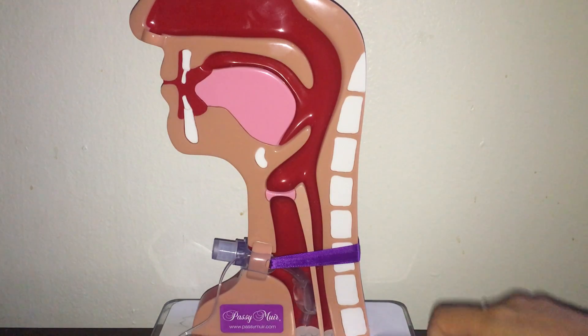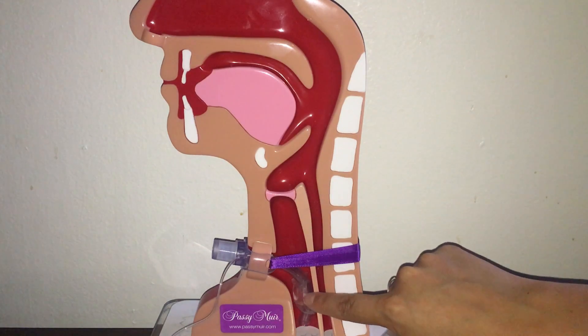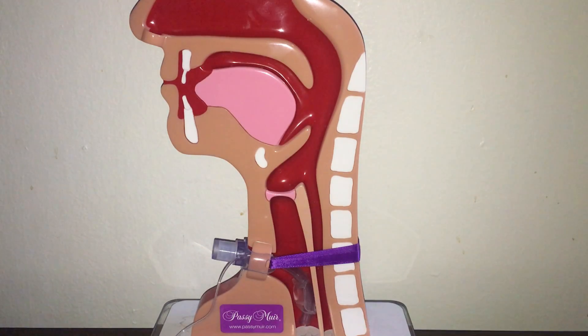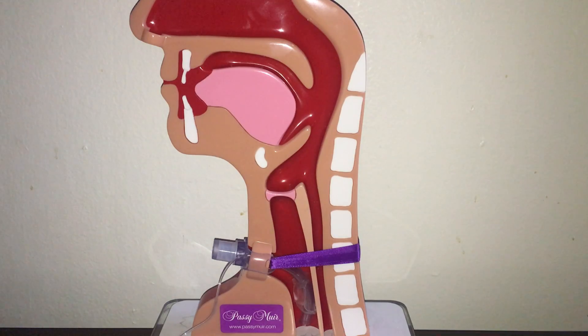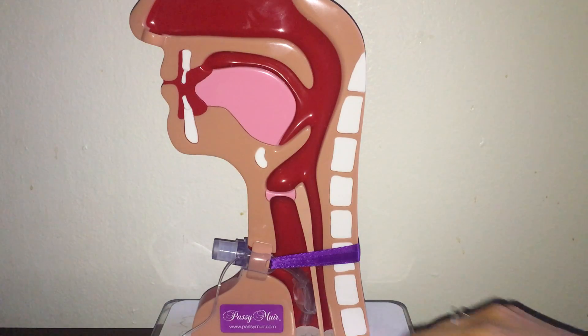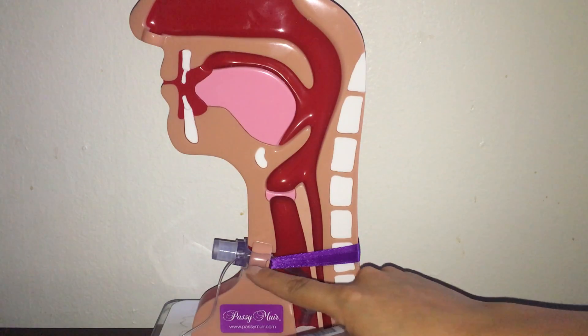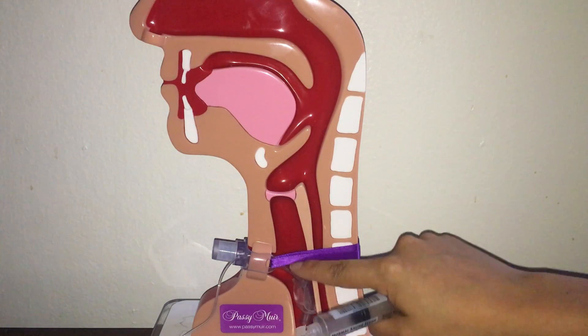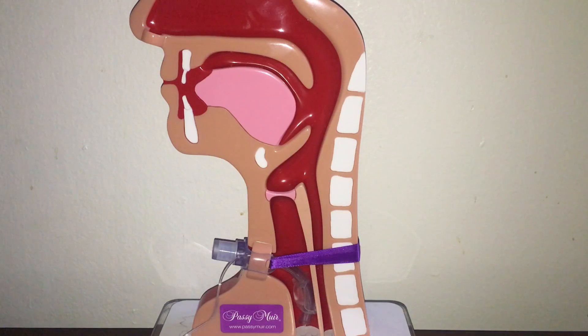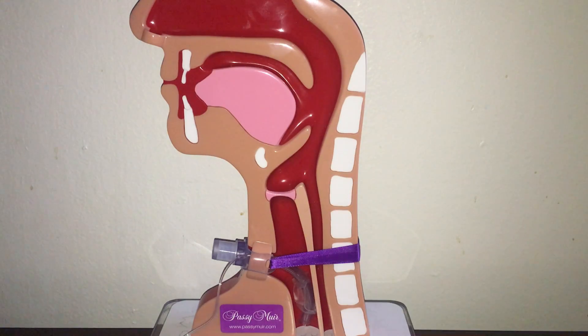When the cuff is deflated, air can now flow around the tracheostomy tube and through the upper airway.